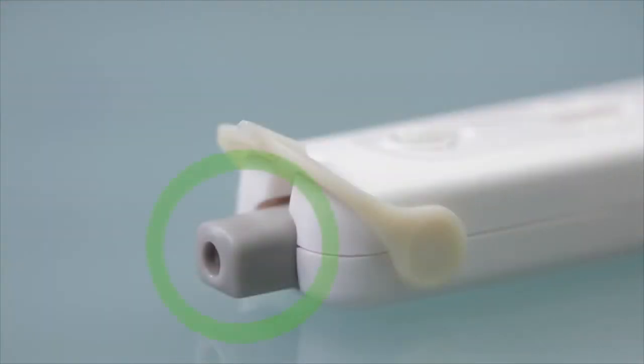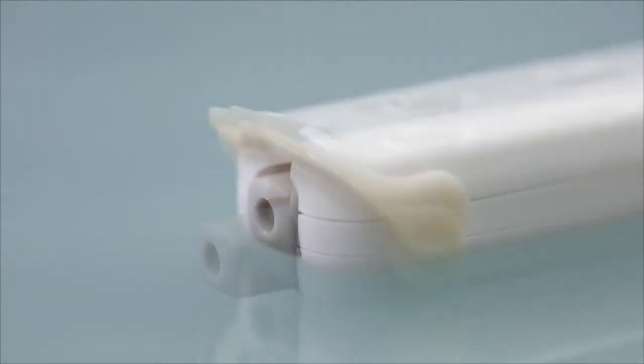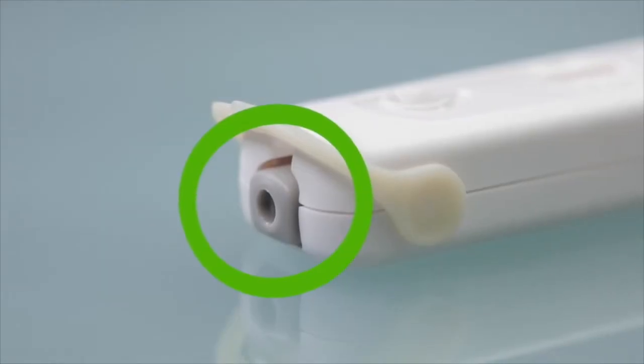The grey button is used to prick your finger. It can only be used once. It will look like this before you push on it, and it will retract after you prick your finger.